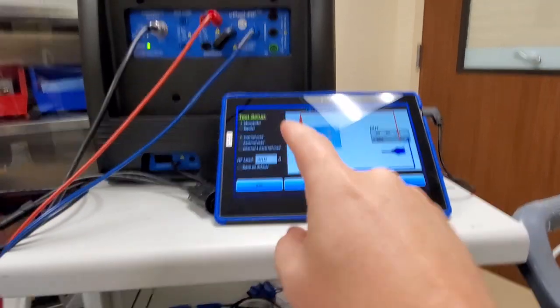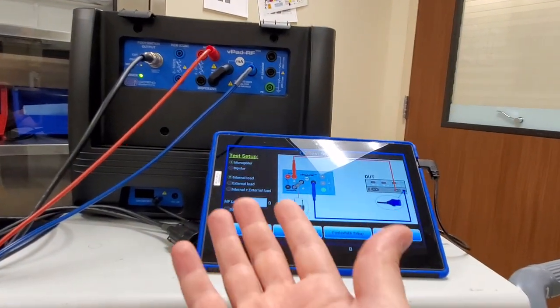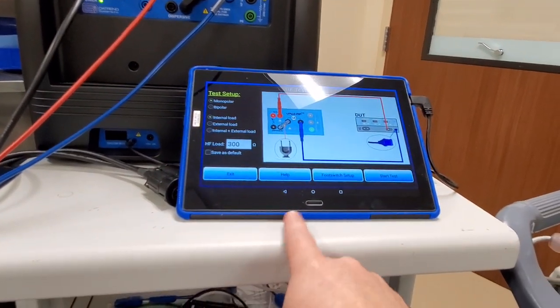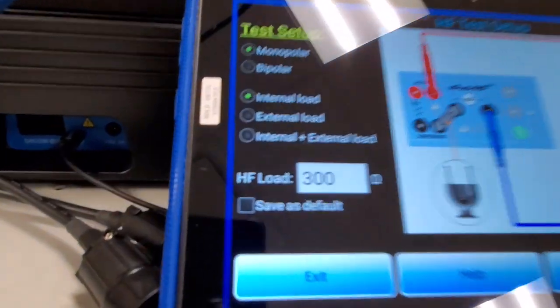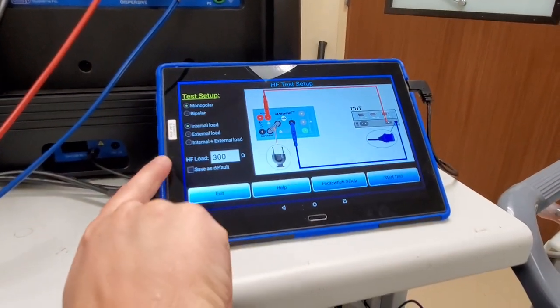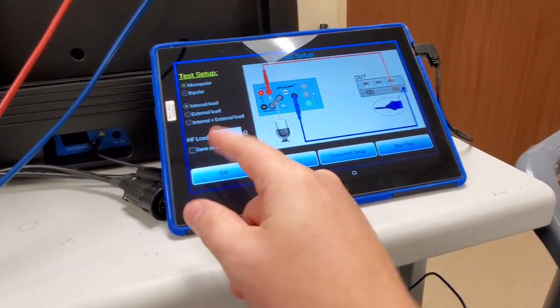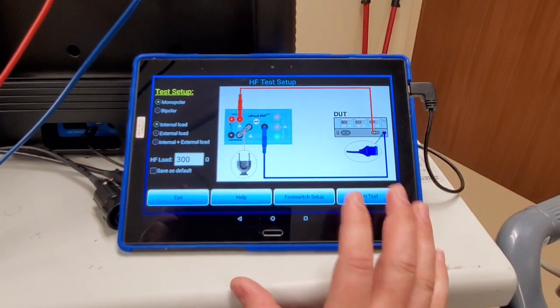This unit would be my pick out of all the devices I've used lately, but they really mess it up. When I booted this guy up just moments ago, it was unplugged - because it's an analyzer, I'm not going to keep it plugged in all the time. Guess what happened? My tablet battery ran out, and I had to sit here for five to ten minutes waiting for it to get up to five percent charge just so it would turn on. Complete garbage. They even had to put a sticker on it that says 'hold until it vibrates' for the power button because you have to really depress it hard for three or four seconds.